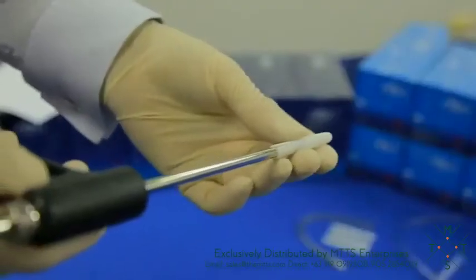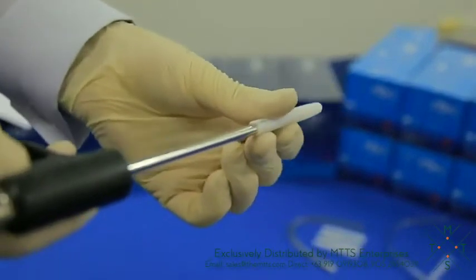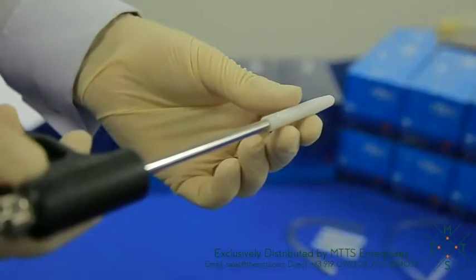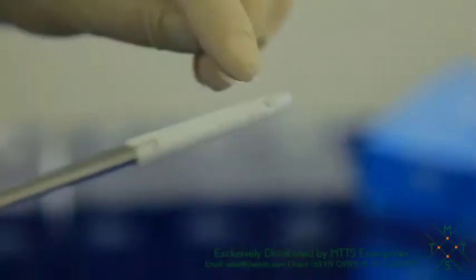The capsule can be placed on the handpiece in two hole orientations to suit both left and right-handed or above or below hand approach techniques. Simply ensure the capsule hole is facing the correct side for your technique.